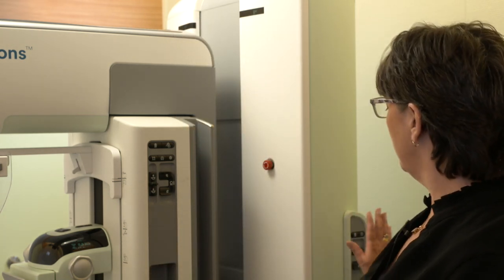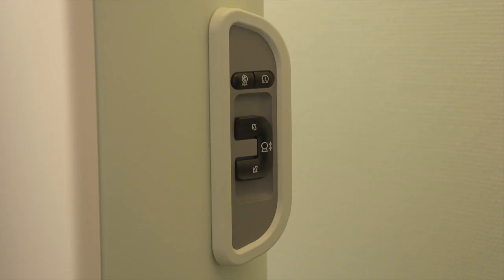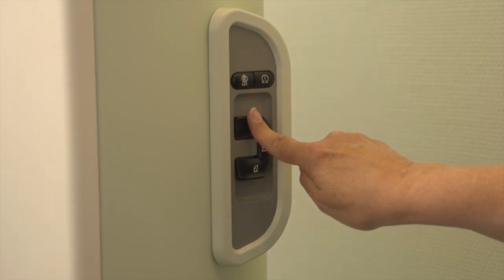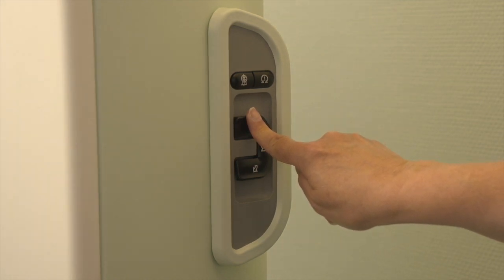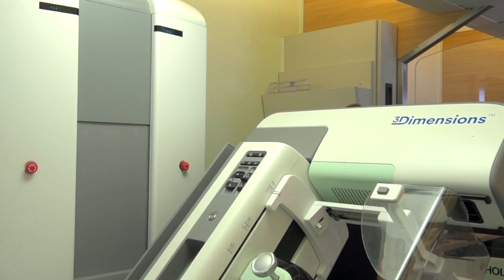The gantry and the C-arm have been designed with ergonomic features that maximize ease of use for the mammographer but minimize patient discomfort. The radiographer is able to move the tube head away from her or towards her without actually overstretching or crouching down.